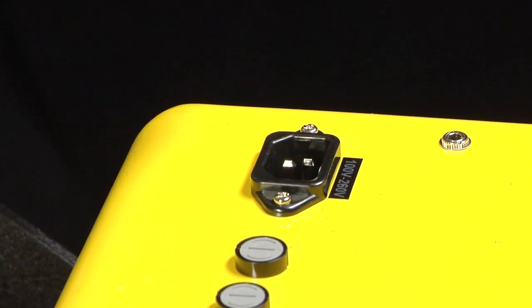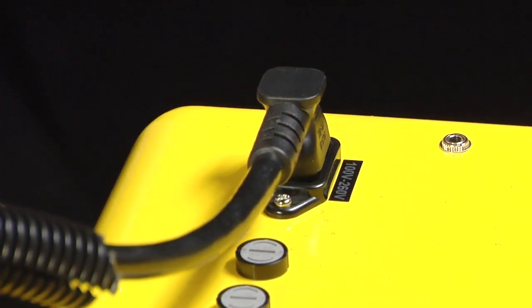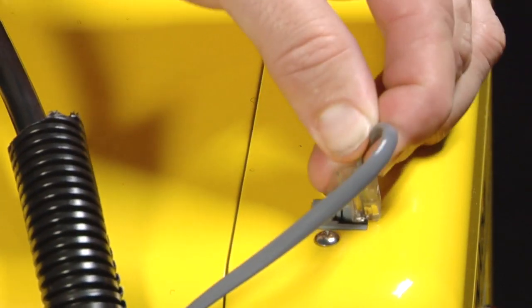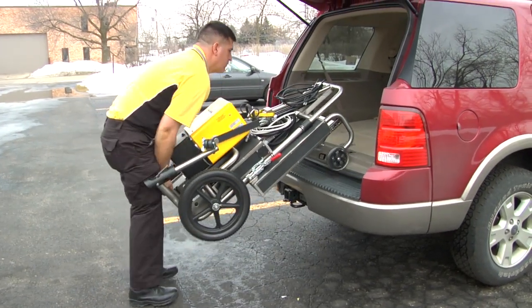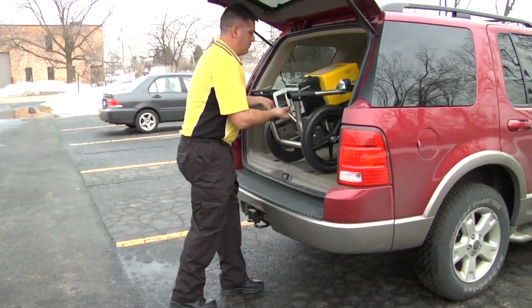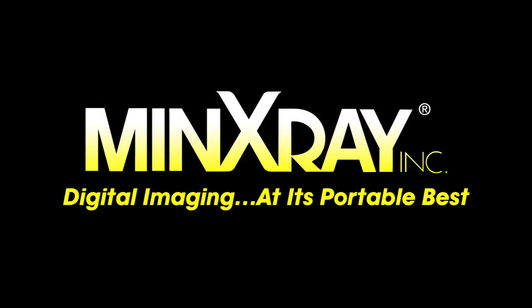Connect the tube head communication bundle cord into the power port and the RJ11 port. Connect the exposure switch and cables to the appropriate USB connection.